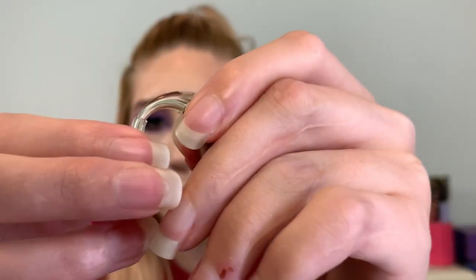This hearing aid doesn't work anymore — I did have two of these but I have no idea where the other one is. I'm very glad I don't have these anymore because these were a pain. Me and my mom would get double-sided sticky tape to try and tape it to my head, it'd get stuck in my hair, we tried headbands. We tried longer and shorter pieces of plastic — I don't really know the right terminology for all the different parts of a hearing aid, but it was a journey.